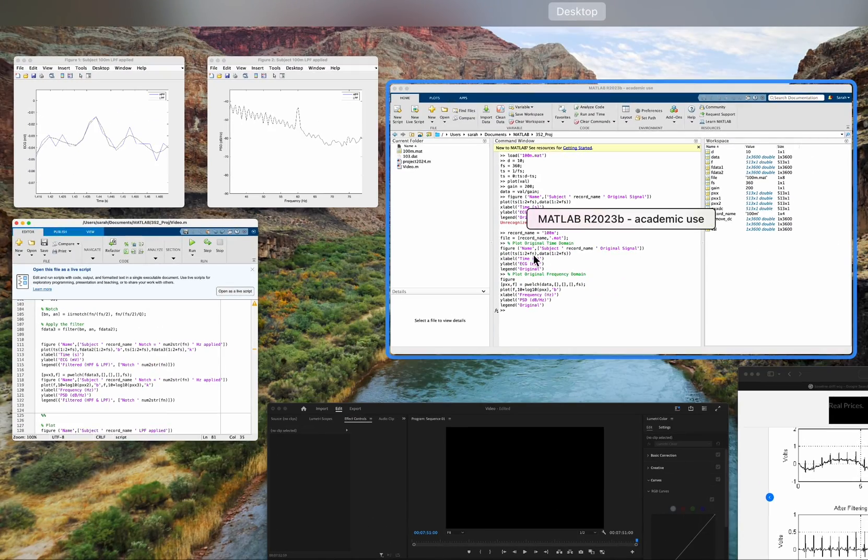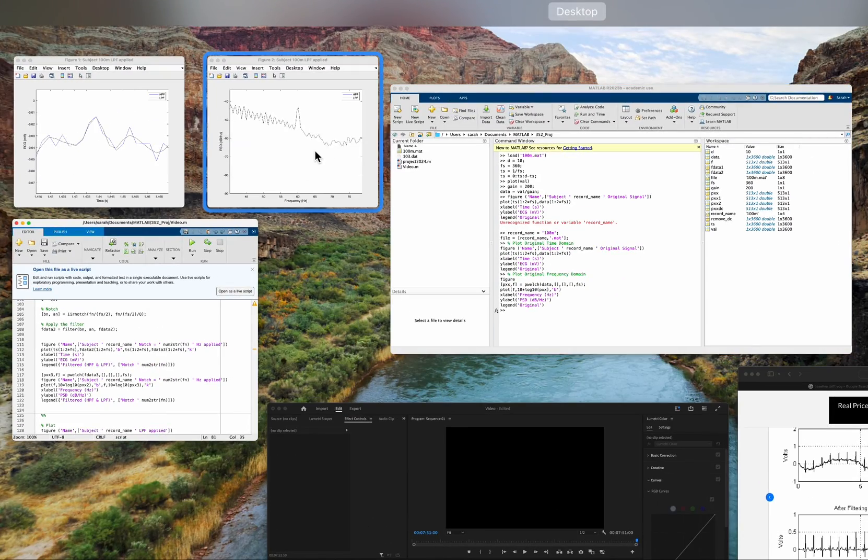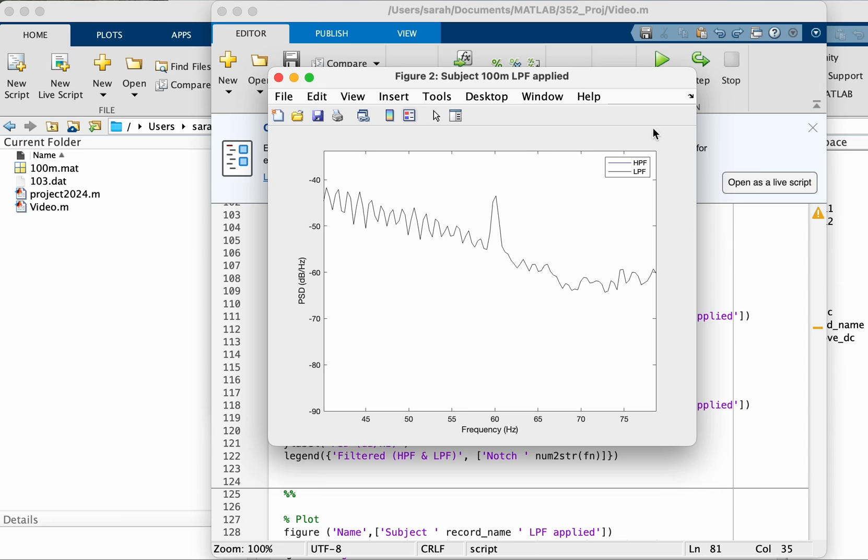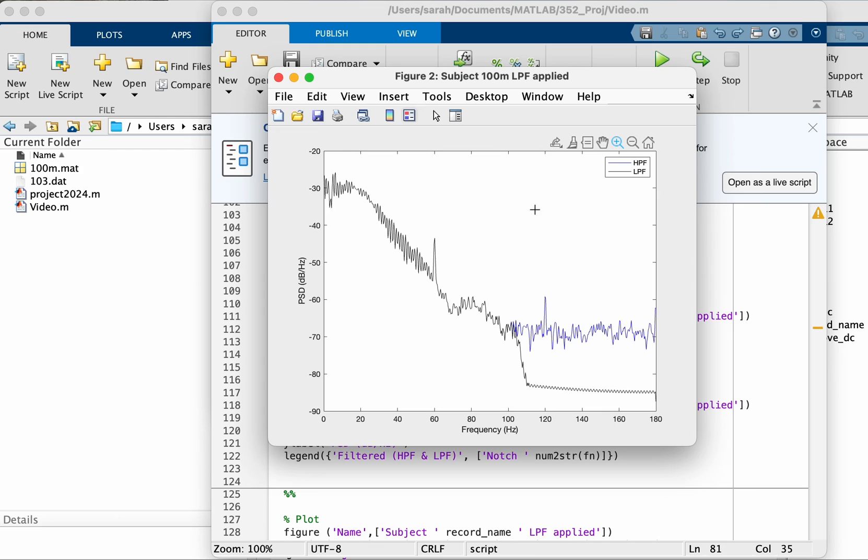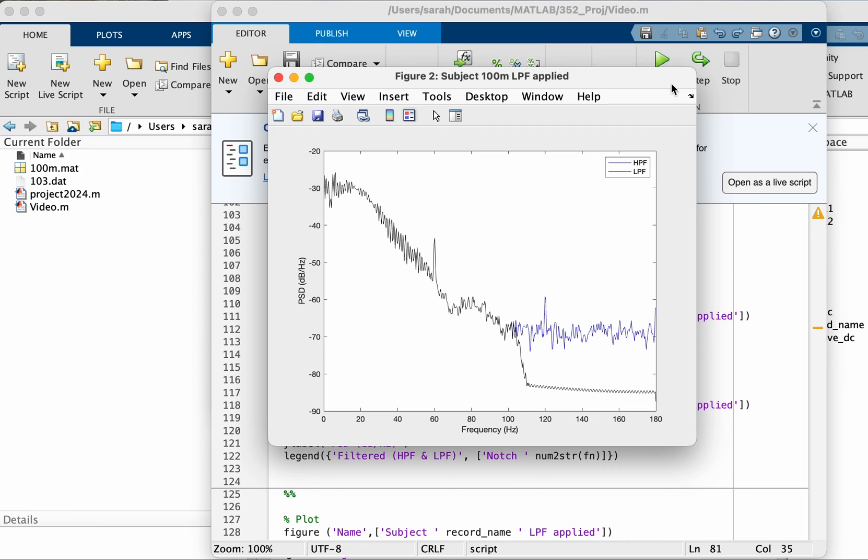If I had my peak, sometimes it depends on the country that the signal was recorded in. For some countries the interference is at 50, so you would see a peak here at 50. This is why it's important to look at your signal in the frequency domain to decide your approach to filtering.